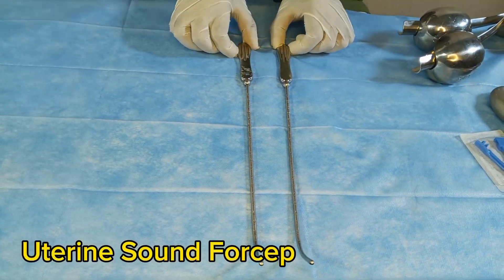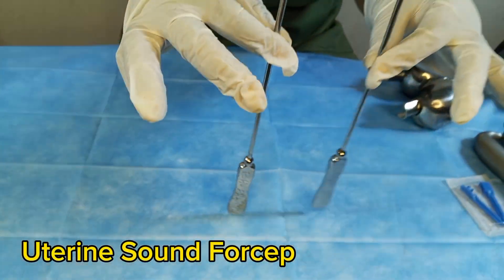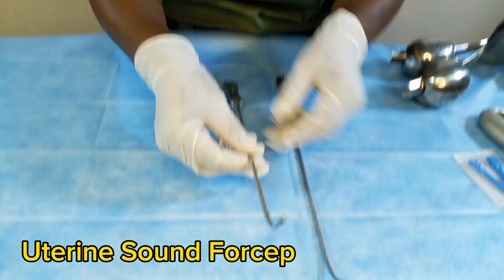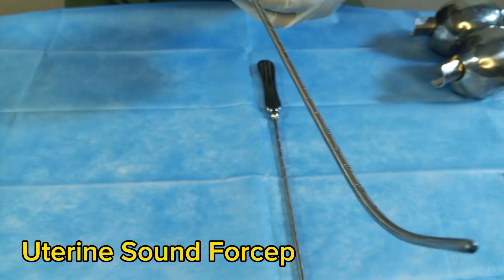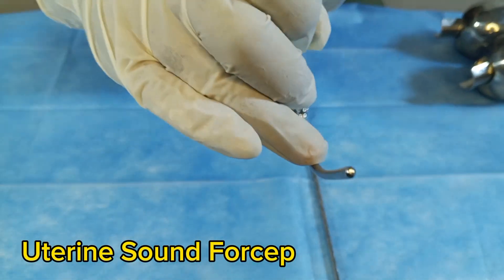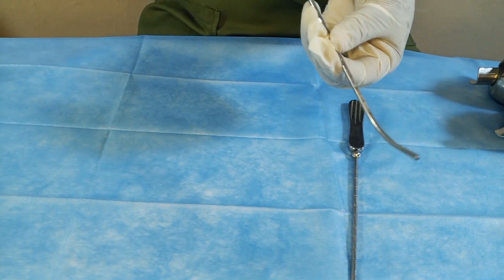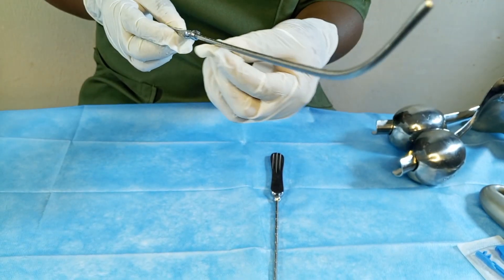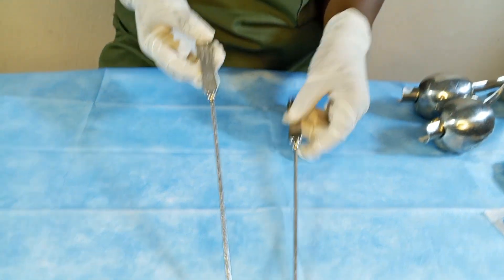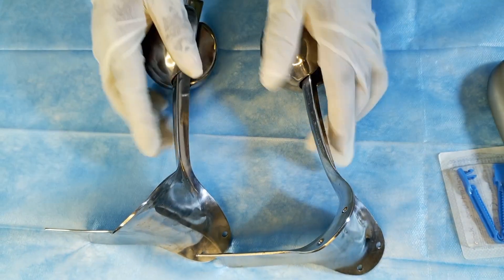The next forceps is the uterine sound. As you can see, it is a curved instrument graduated with numbers so you can measure the uterus from the cervix to the fundus — to know the length of the uterus. It is inserted through the vaginal canal, through the cervix to the fundus, to measure the uterine length.